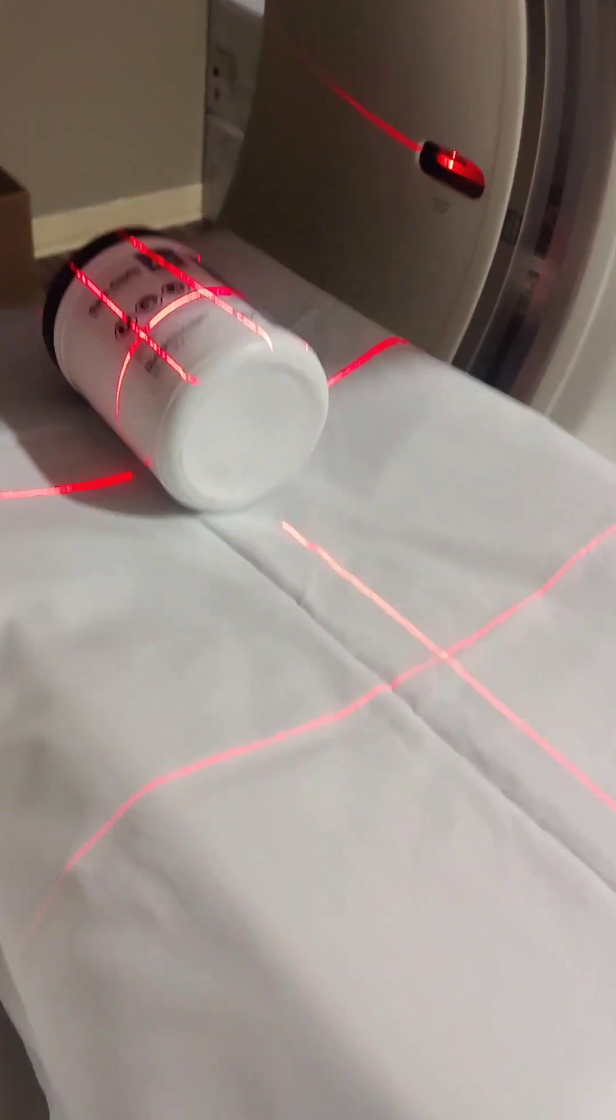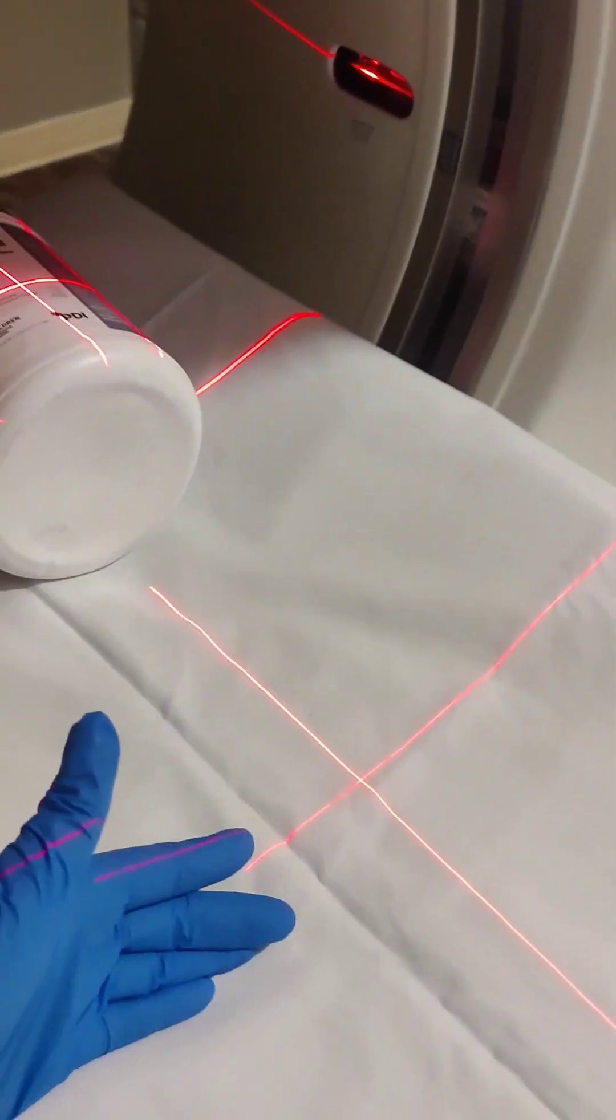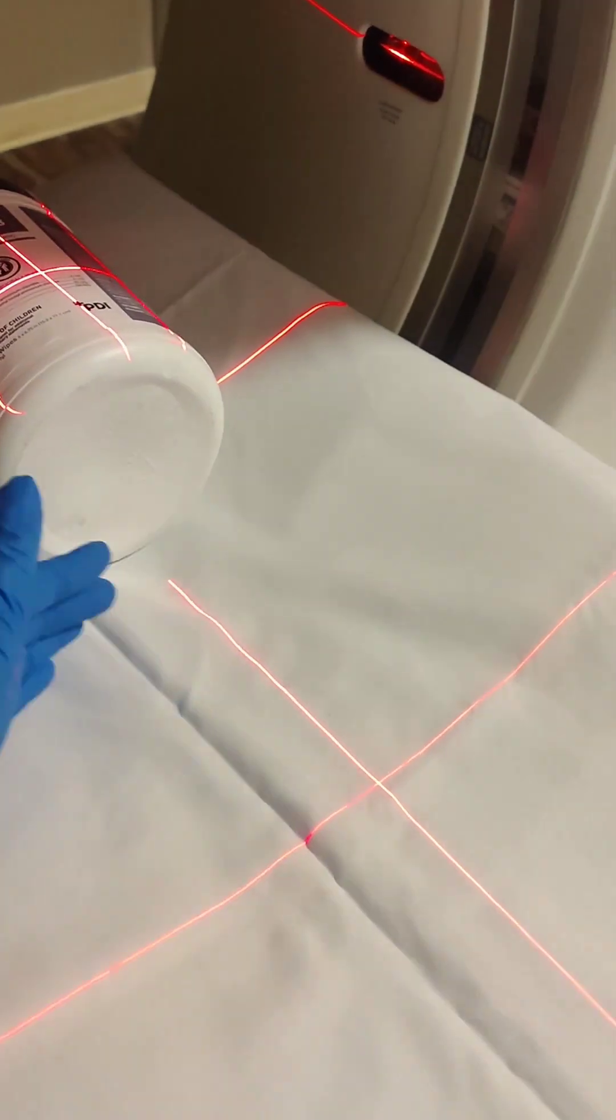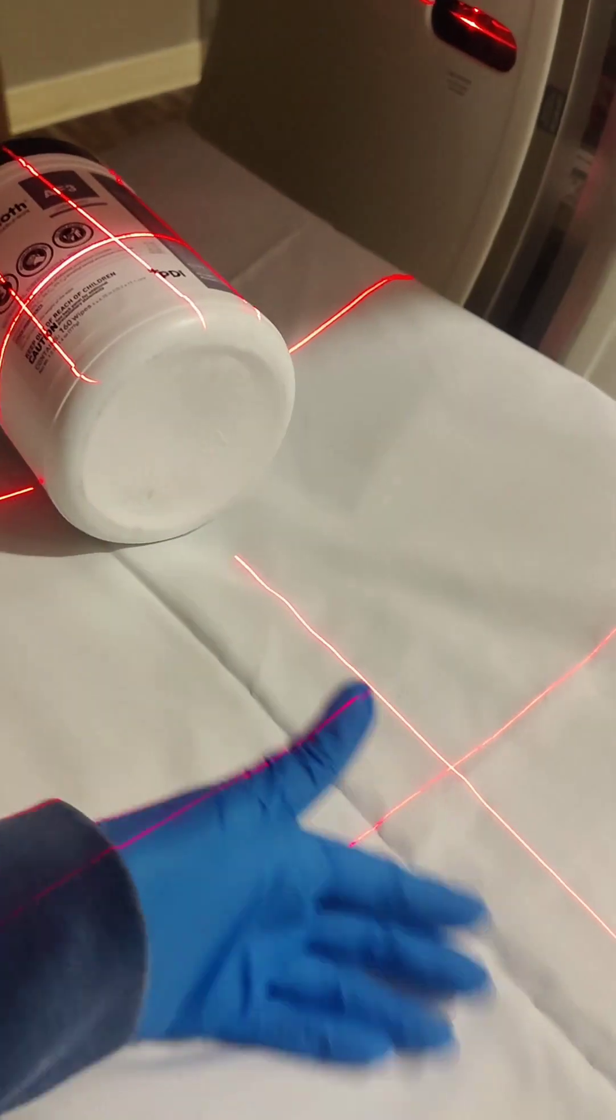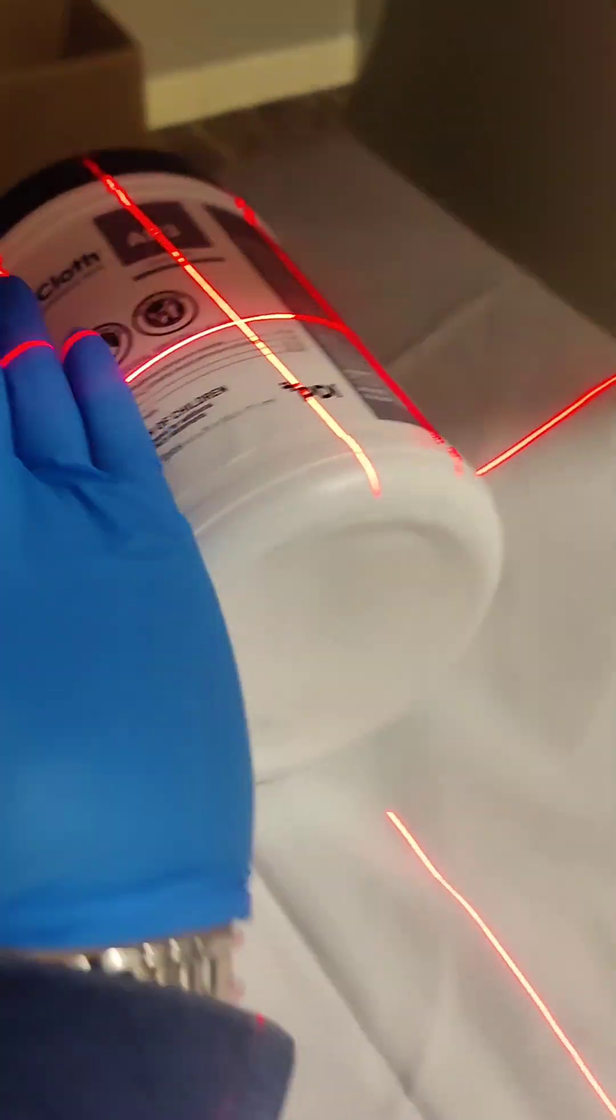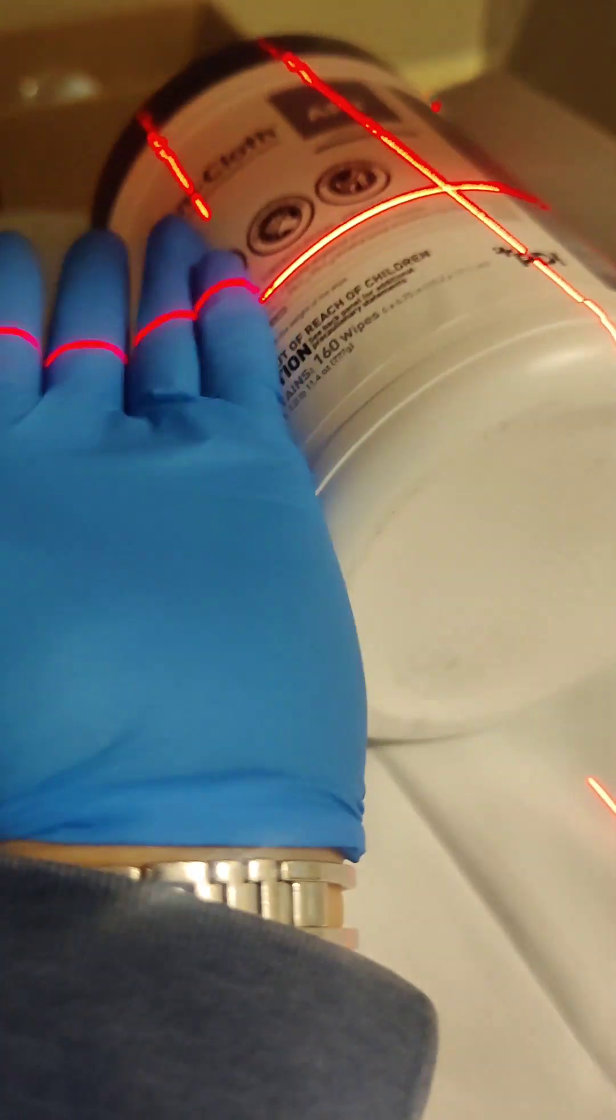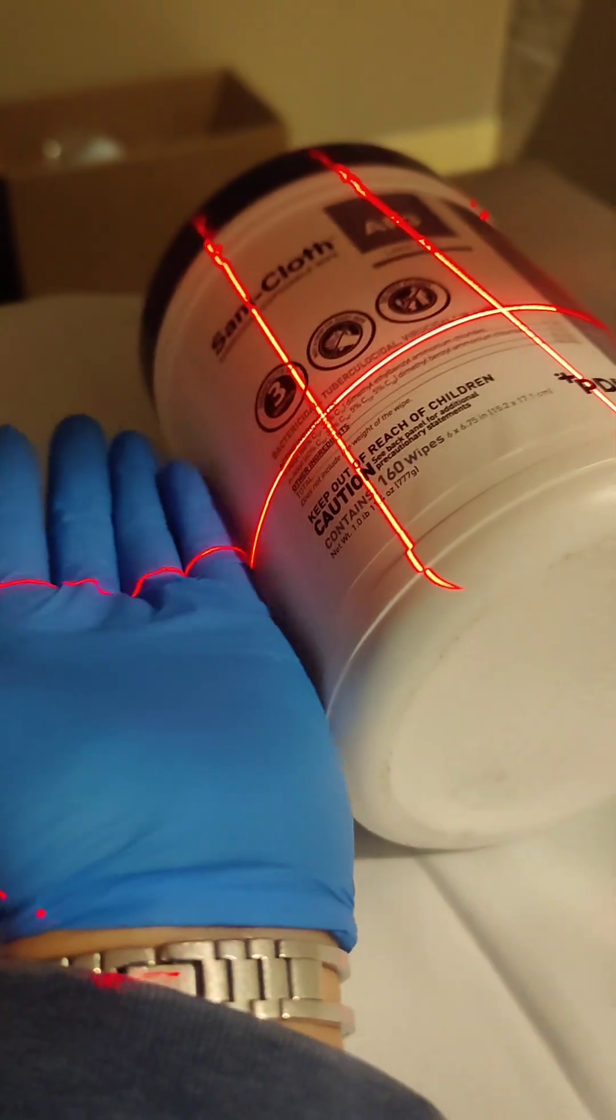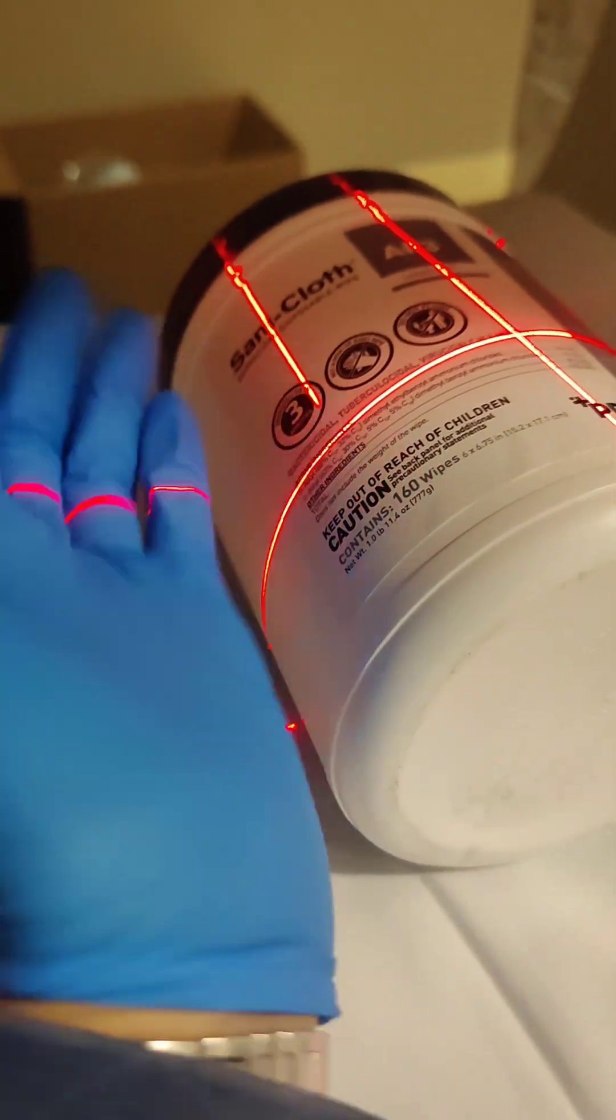But if your light is inside and you set outside, and once you start scanning, it's not going to scan. So go inside. And then, of course, you have to look at all your other lights because that makes a difference.